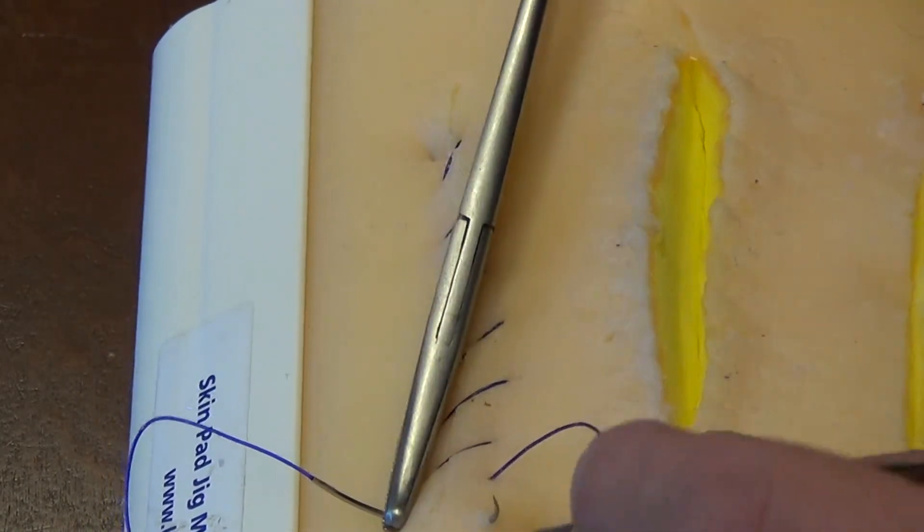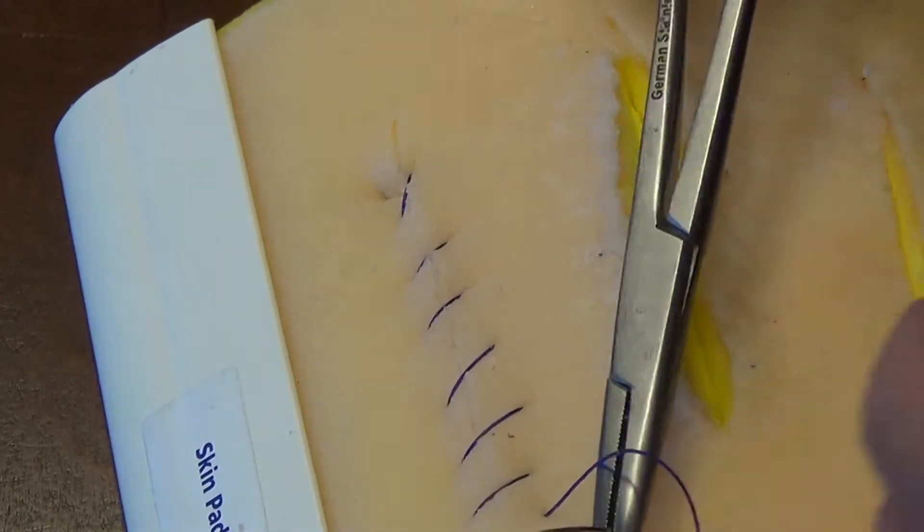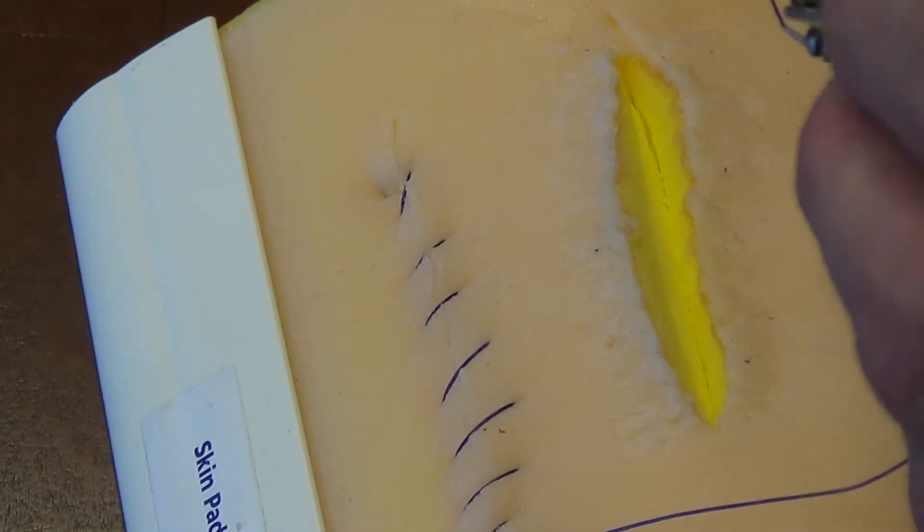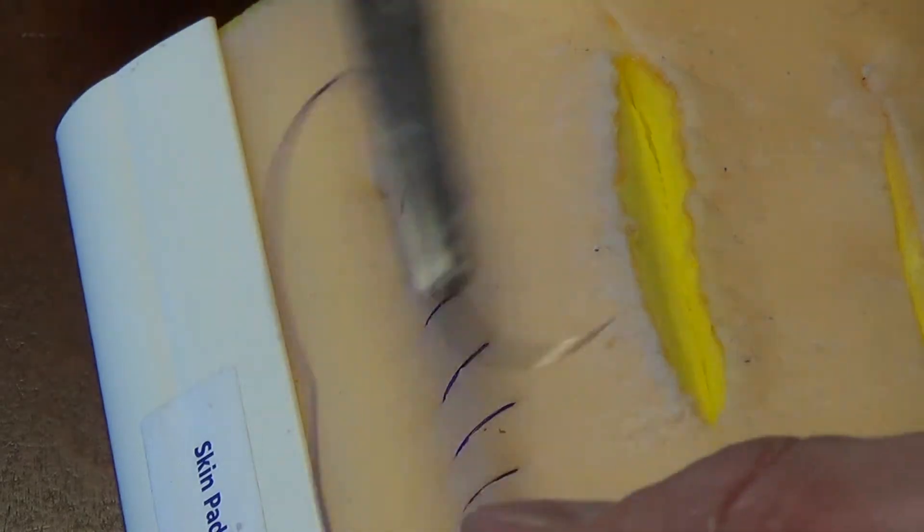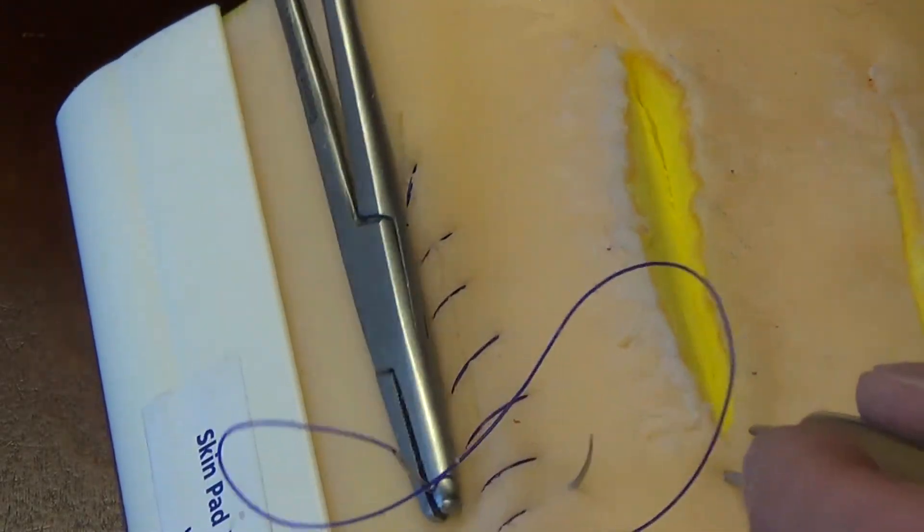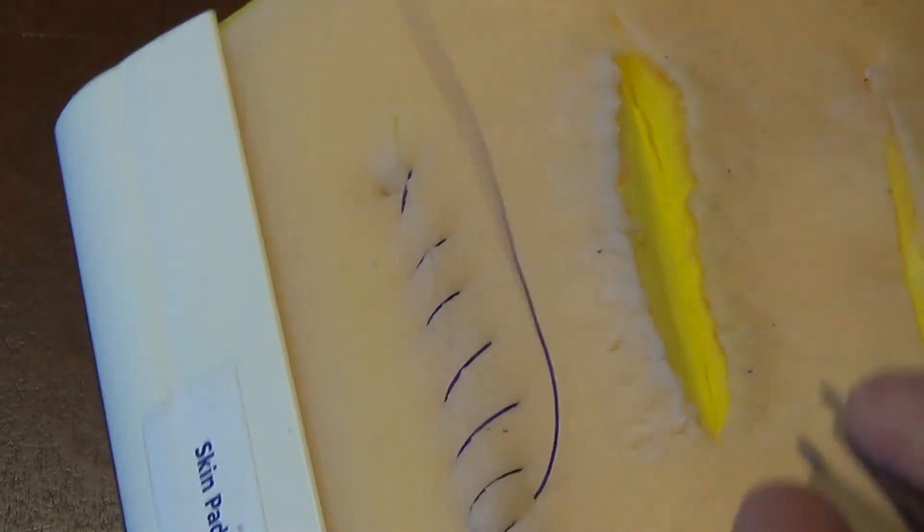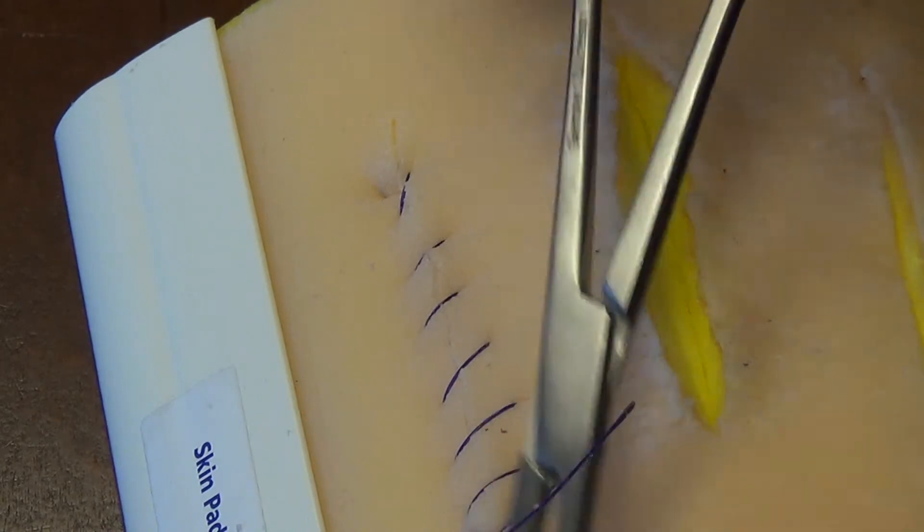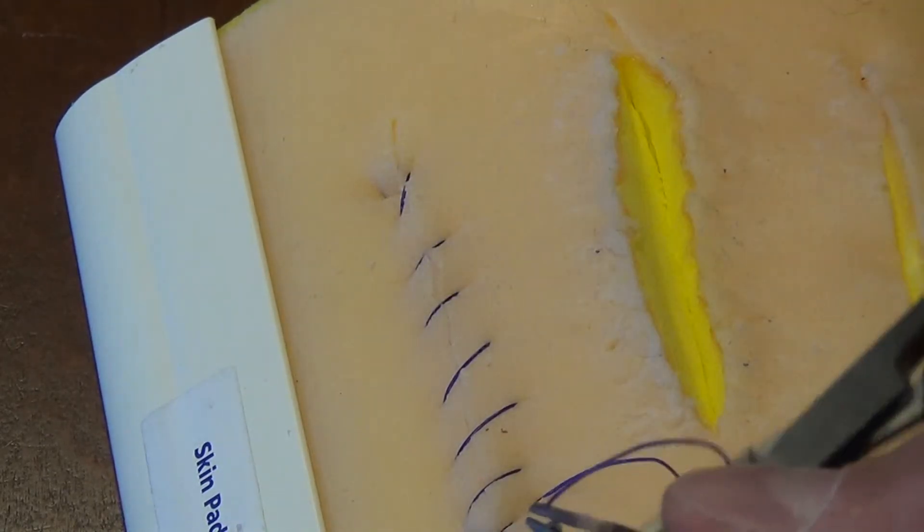In suturing practice, using the arc of the needle as a mechanical advantage is a key element of suturing technique. If you can demonstrate that in your animations or illustrations, that would be very realistic.